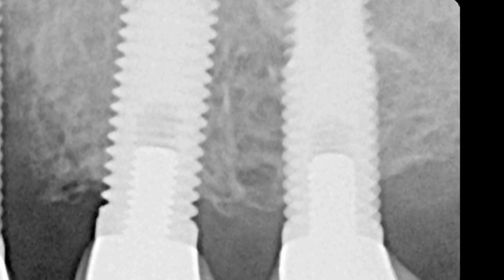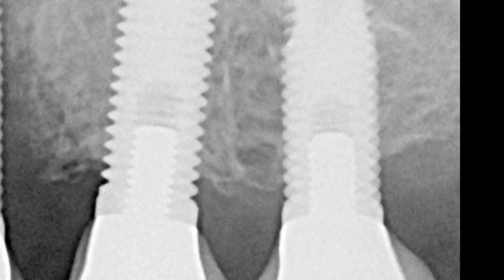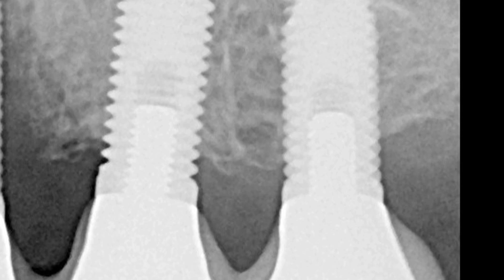Why not? I was scared — maybe the same reason you've never placed one. I was afraid to put one into somebody's maxillary sinus, afraid to put one into somebody's mandibular nerve. Let me share with you an x-ray that pretty much sums up why I was afraid to place implants for the last 10 years.